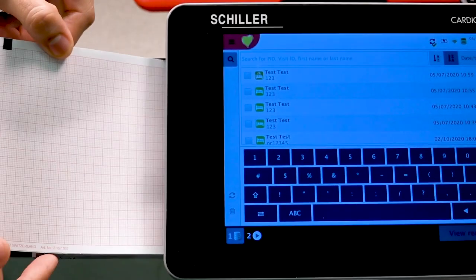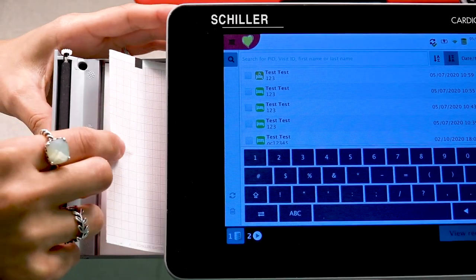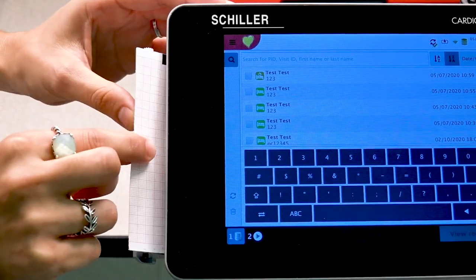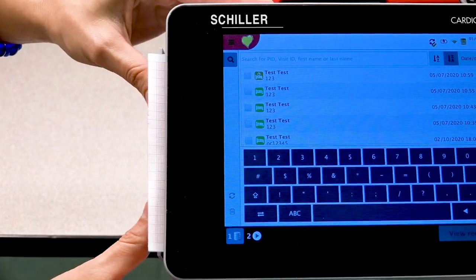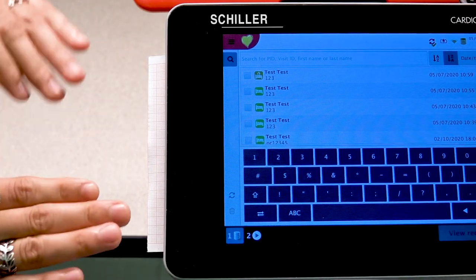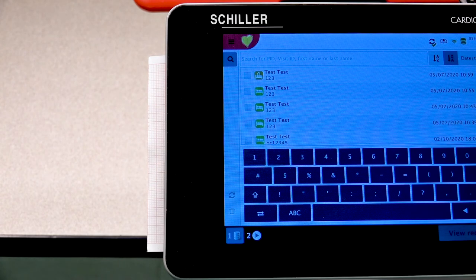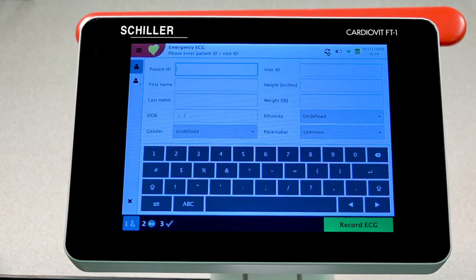Grab the pack of paper and slide it into the paper drawer. Lift up the first sheet, gently slide the drawer closed while slightly tugging on the paper, then press the drawer closed and leave a little bit of paper hanging out. You have now properly replaced your thermal print paper. This concludes our demonstration. If you have any additional questions, please feel free to reach out to Schiller Americas or your local distributor.